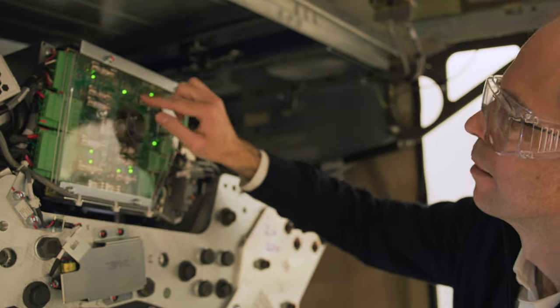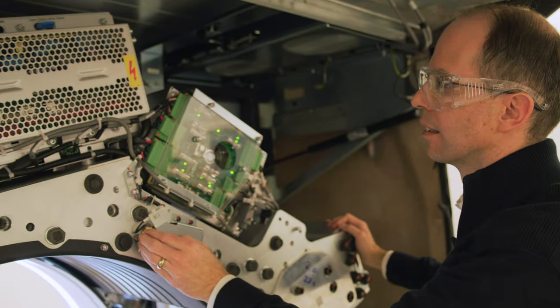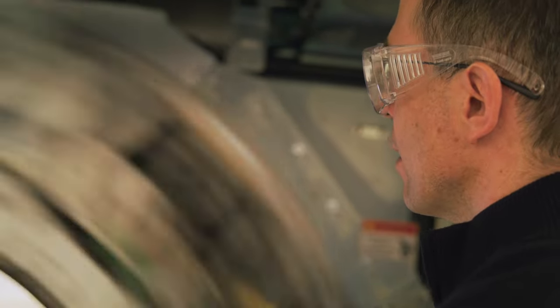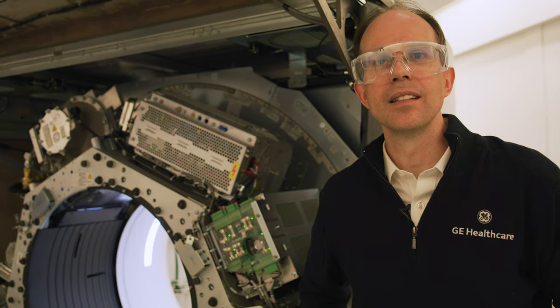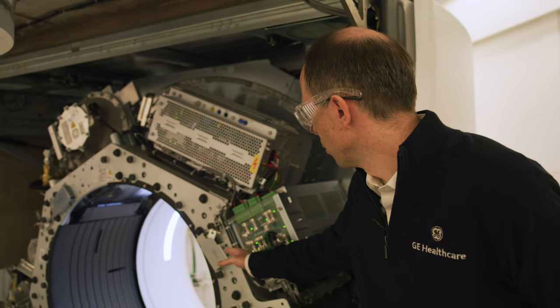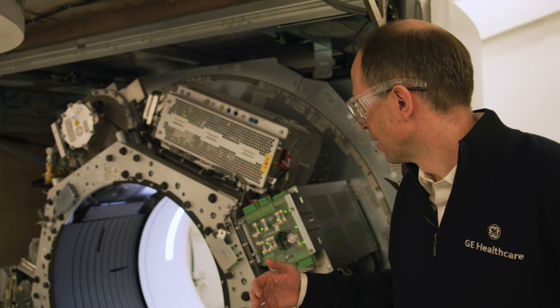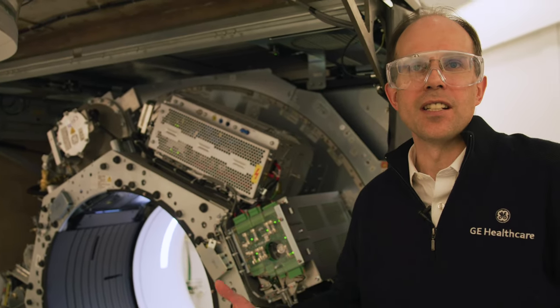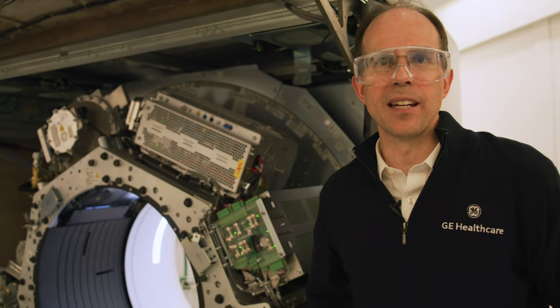We're designing electronics that can handle very high g-loads at the same time as figuring out how to cool them. 50 g's, like I used to fly in the military, and anything, even the small components, its weight is multiplied by 50. Absolutely. Anything—cables, lasers that are on here that are used for patient positioning—everything is 50 times its force. So every single component has to be analyzed.